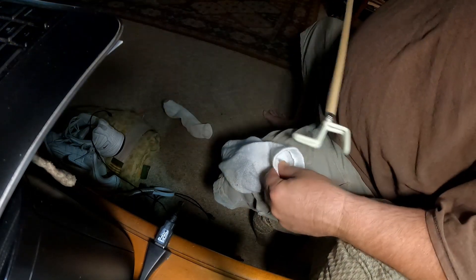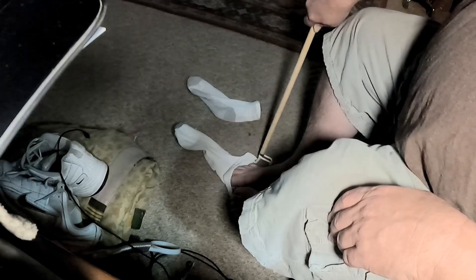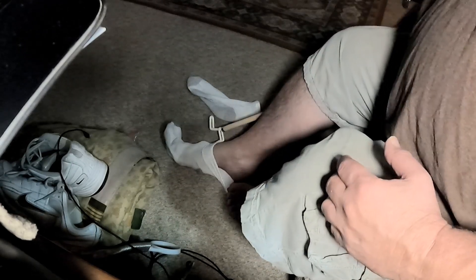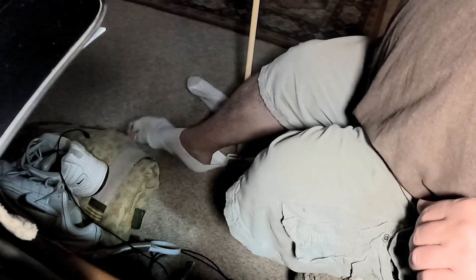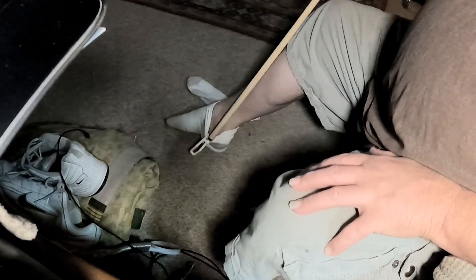I'm using ankle socks. I orient the ankle sock so the opening is towards you. I put my toe inside the tool and stretch the sock out so you can get a foot in. Then I use that part of the tool to reach in and push down on the sock to hold it to the floor. As I push my foot into the sock — see how I'm holding it down to the floor — now that sock's on. I can straighten it out using the tool.